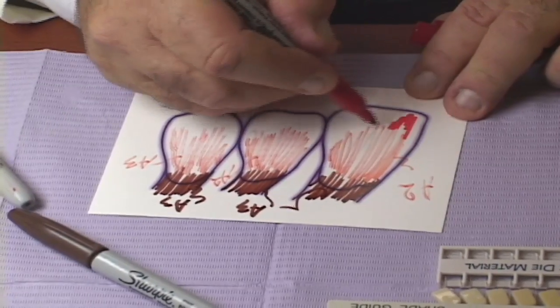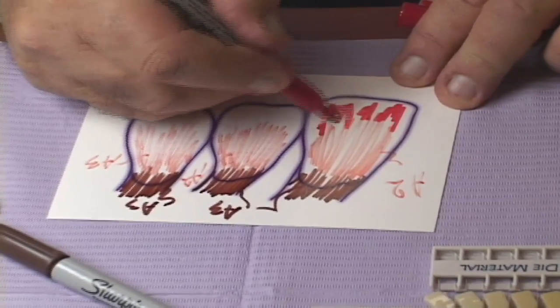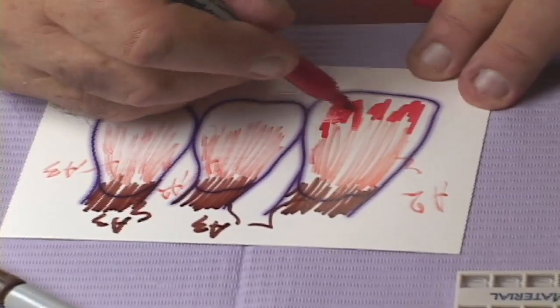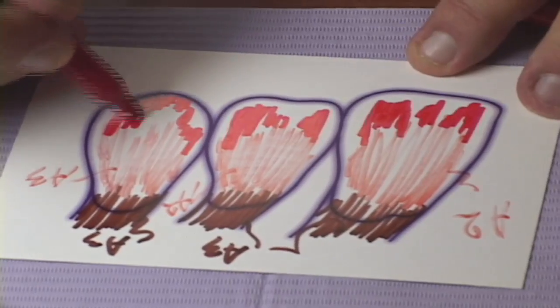The next part is to establish the dentin development lobes. What color is it? Normally it's a different color than the dentin — most of the time a little bit darker rather than lighter. Centrals have three lobes and we have to decide how far they are from the incisal edge and how long they are. The mesial lobe on the central is narrow, the middle one is narrow, and the distal one is the widest one normally.